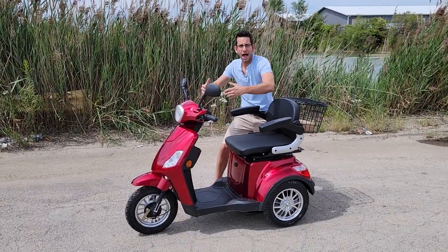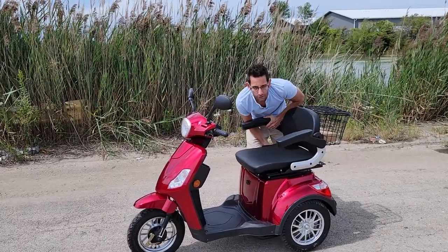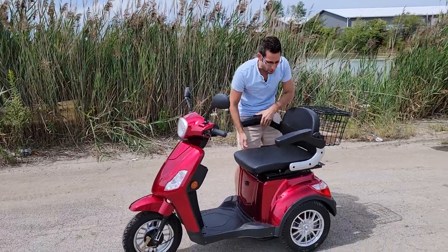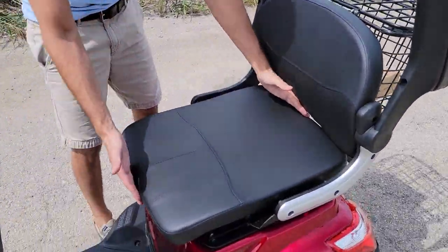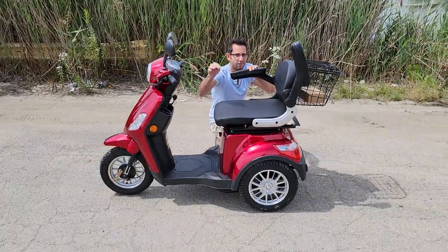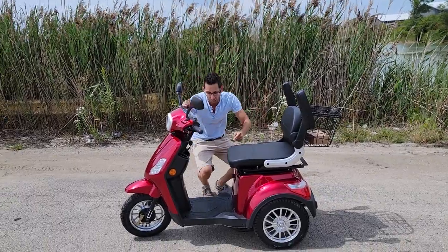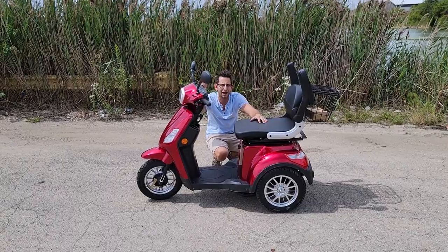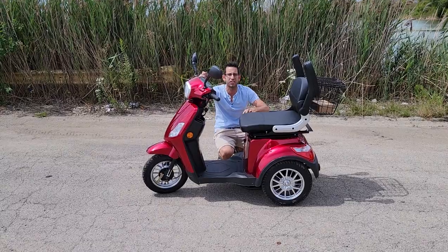If your belly's way out here, no problem. All you've got to do is move the seat forward and back. You see that wide seat? You're almost two feet wide, and about 28 inches long, so we've got all kinds of space for any size of your rear end. Check it out — saferwholesale.com. The Safer 123 — you're going to be much safer with this model. 48 volts of power, big deals on it right now. Call us toll free: 866-606-3991.